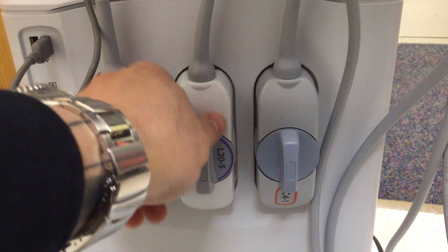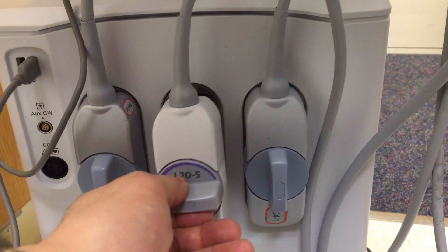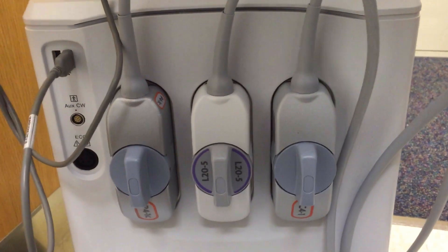Your system may have to access more than three probes, or you may have to remove probes for cleaning. Grab the dial and turn it counter-clockwise. The probe base can then be removed. Replace it into the seat of the probe and turn the dial clockwise so it is oriented vertical to lock it in place.